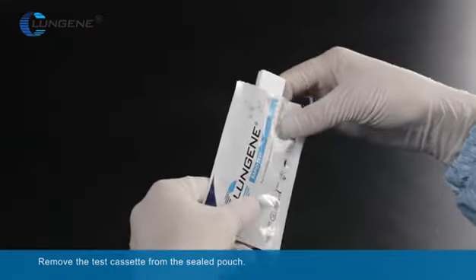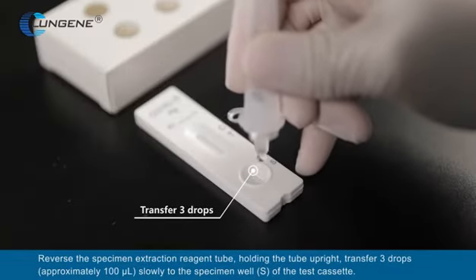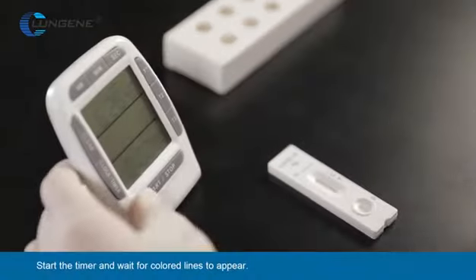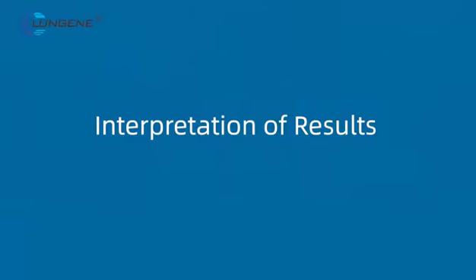Remove the test cassette from the seal pouch. Reverse the specimen extraction reagent tube. Holding the tube upright, transfer 3 drops slowly to the specimen well of the test cassette. Start the timer and wait for color lines to appear. Interpret the test results at 15 minutes. Do not read results after 20 minutes.